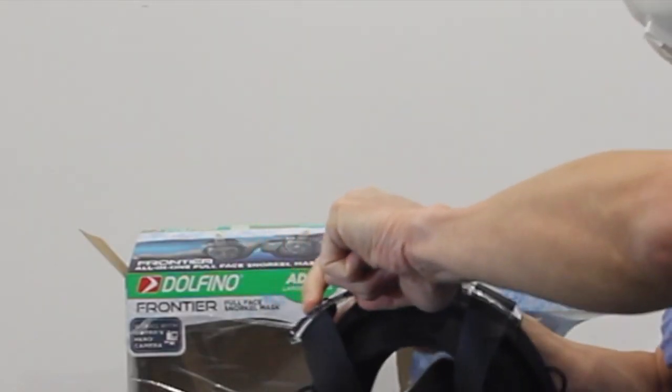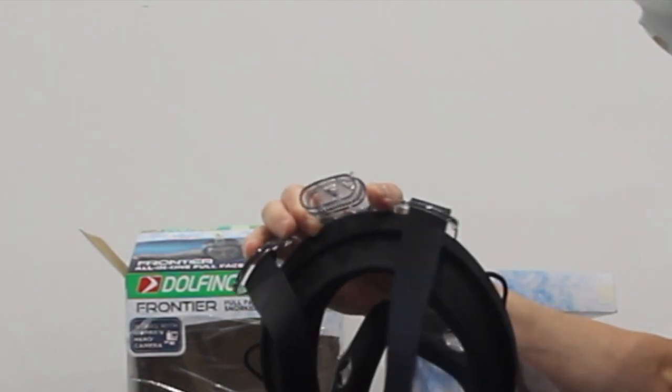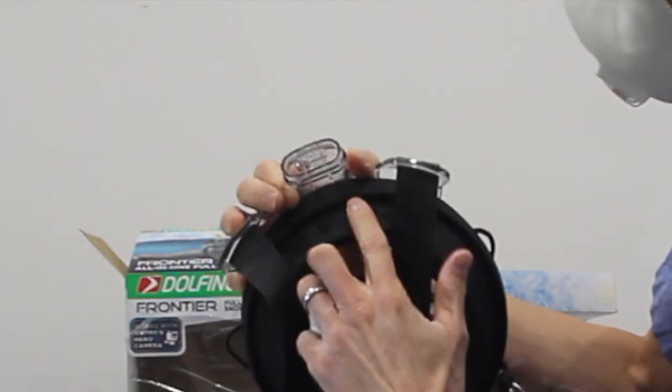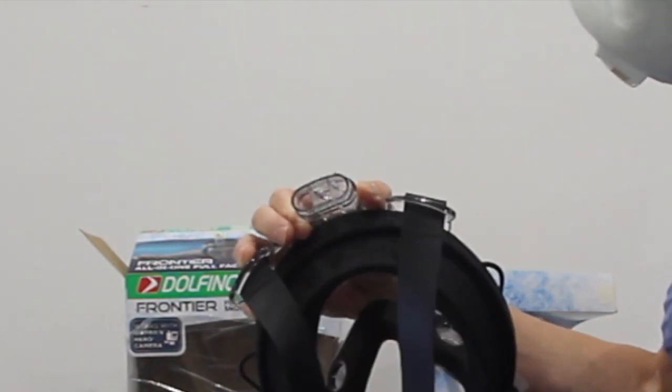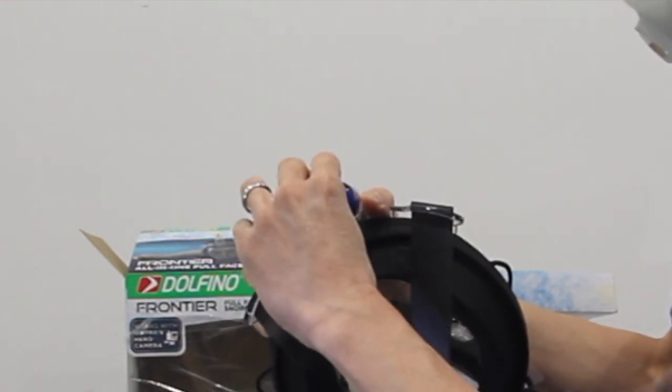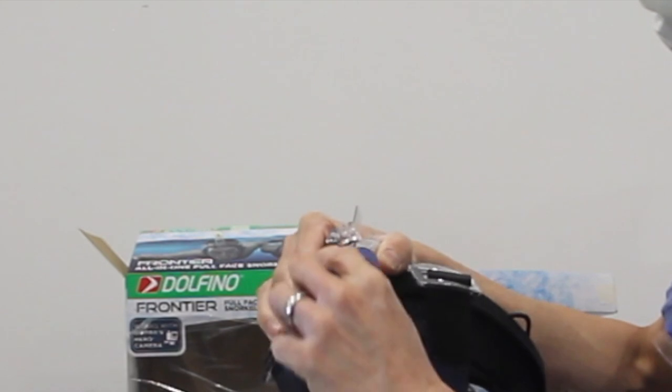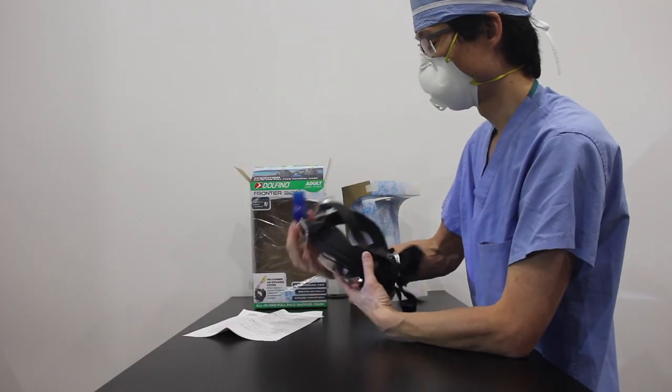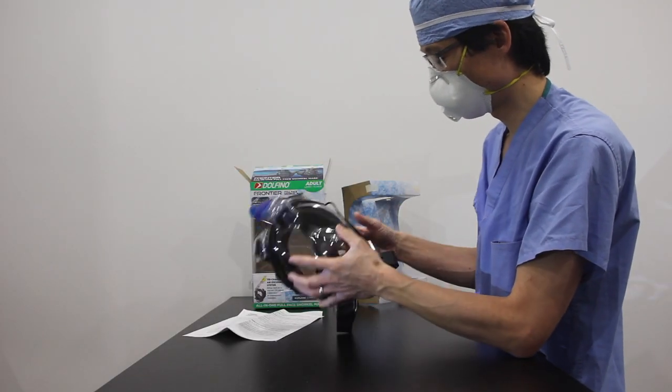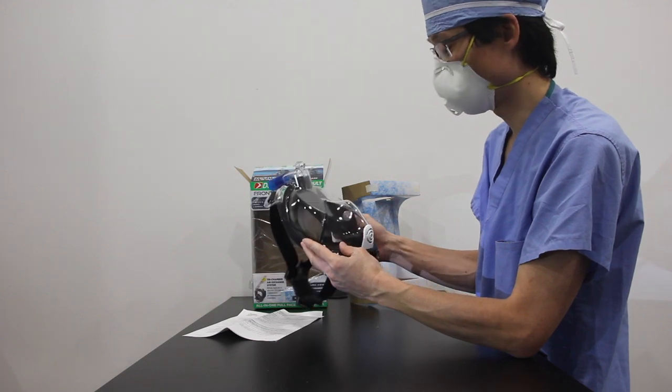And if you take this little adapter off, you can see there's an inhalation port here and two exhalation ports here which the adapter allows it to function. So this goes in really nicely on and off. It has a really nice feel. And it's a really nicely produced mask.